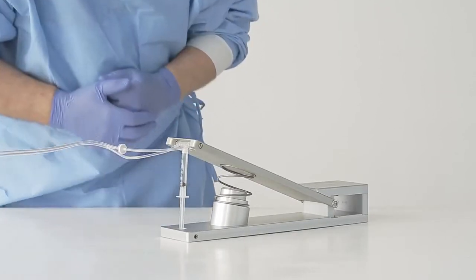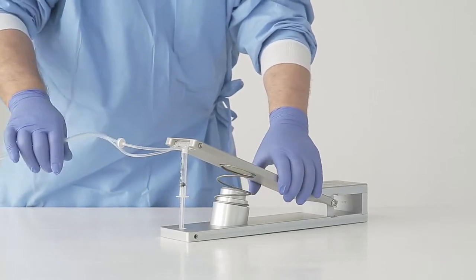After confirming correct mounting of the syringe, the entire unit is placed on the floor.